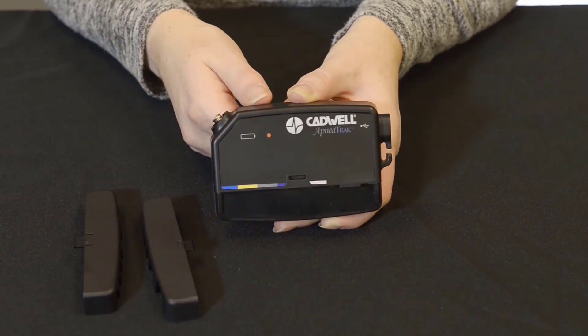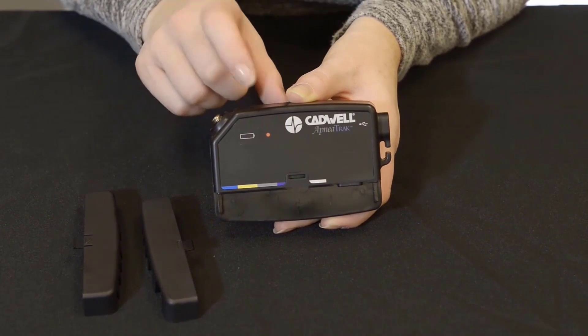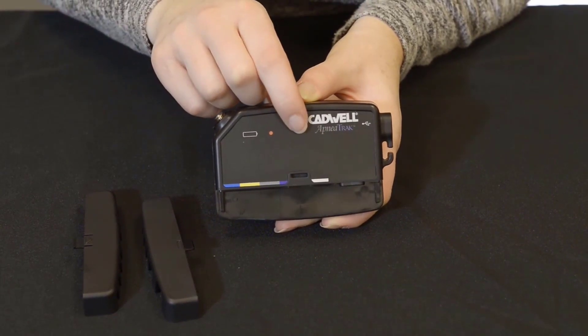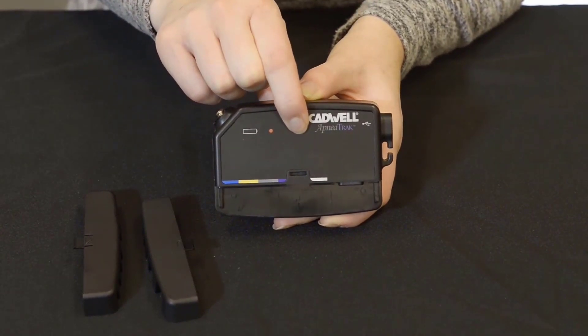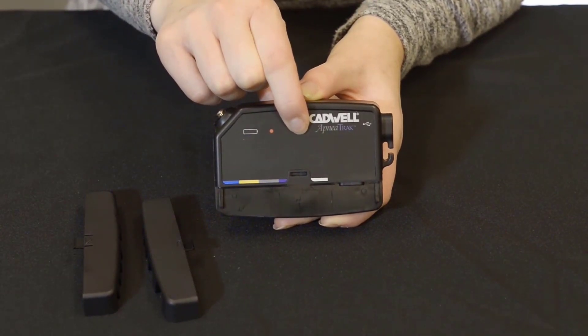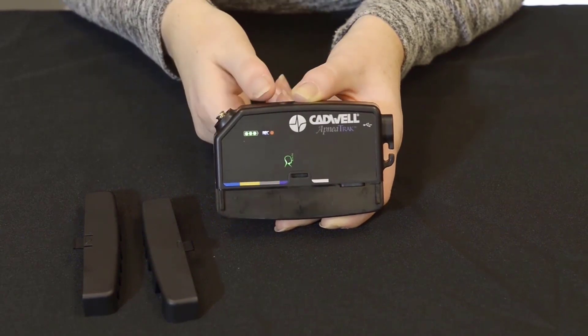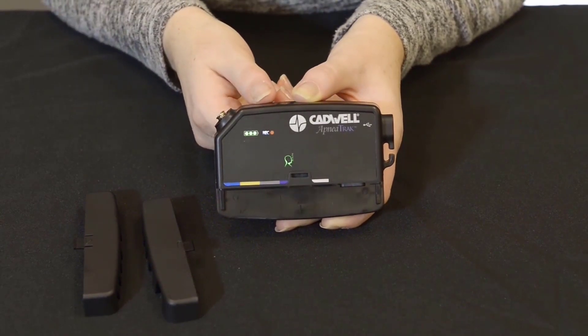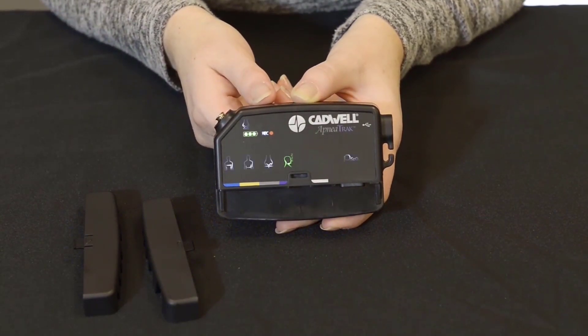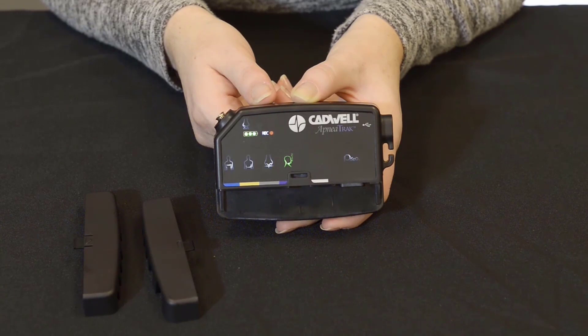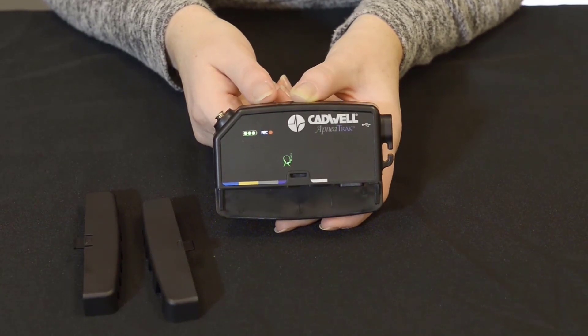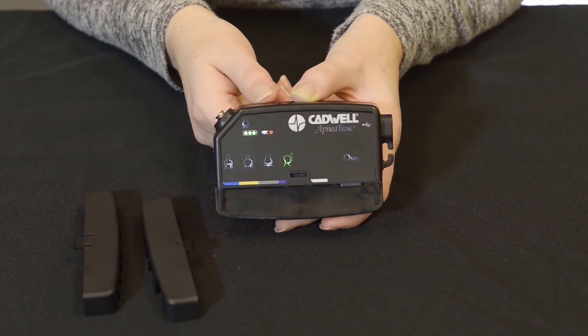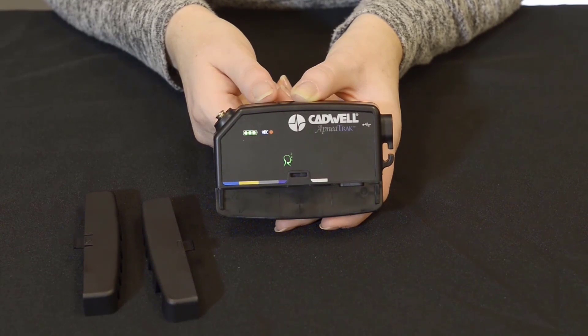Pressing and holding the button for 3 seconds will start the LED walkthrough or signal check if the option has been enabled in the software. If the device is in the manual start mode, this will also start a recording. The signal check can be accessed at any time before or during a recording regardless of mode.